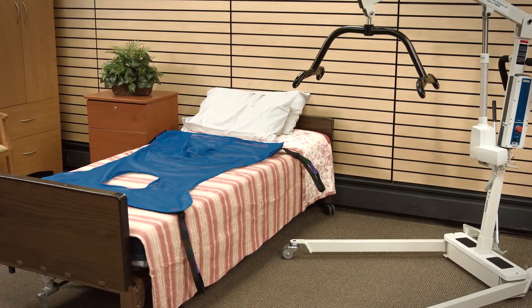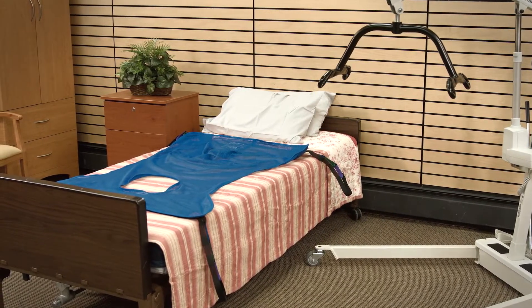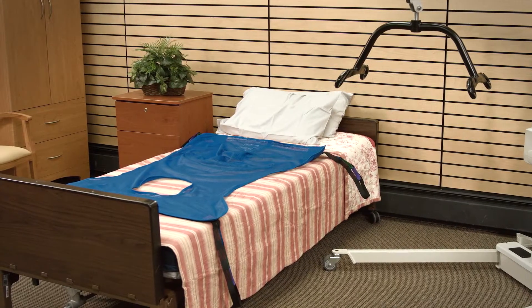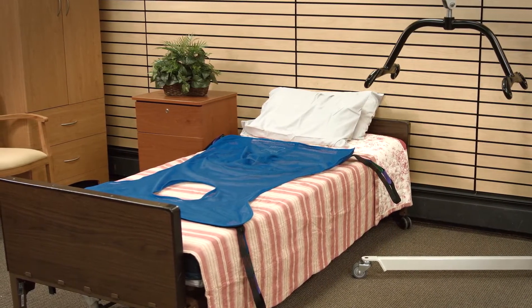Let's begin with how to operate the electric patient lift. Safe transfers begin with inspecting the patient sling. Do not use a sling that is worn, has loose stitching, is frayed, torn, has broken components, or is excessively washed and bleached. Broken slings are unsafe. If the sling appears to be unsafe, do not use it.